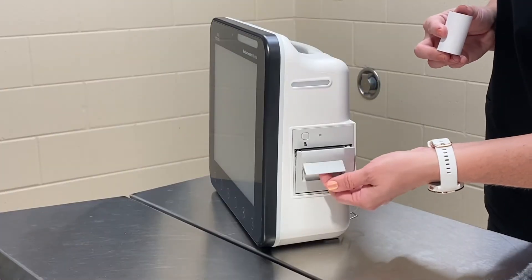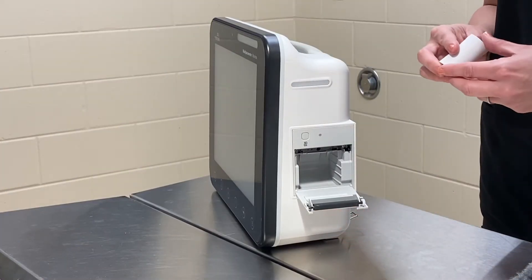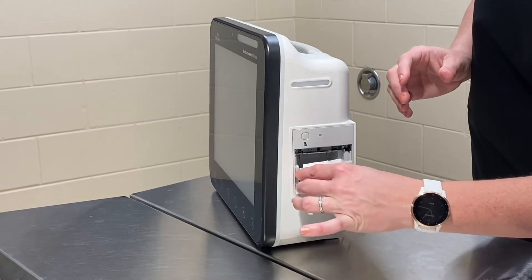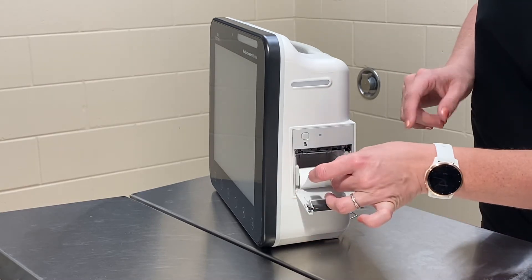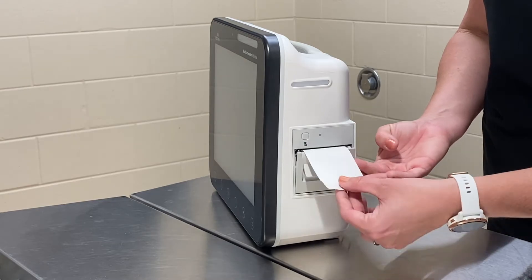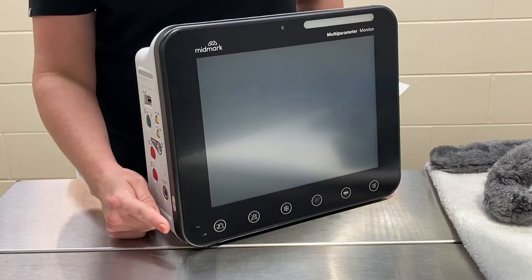Let's begin by opening the printer compartment. Insert a roll of paper with the paper coming off the bottom of the roll. Pull enough paper from the roll so it hangs over the door when closed.